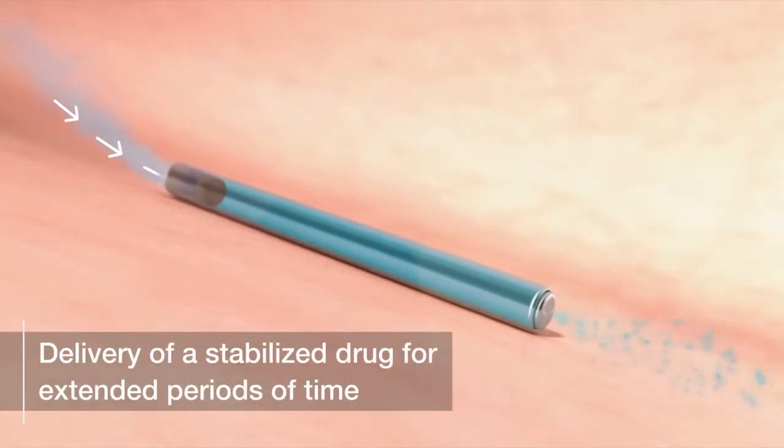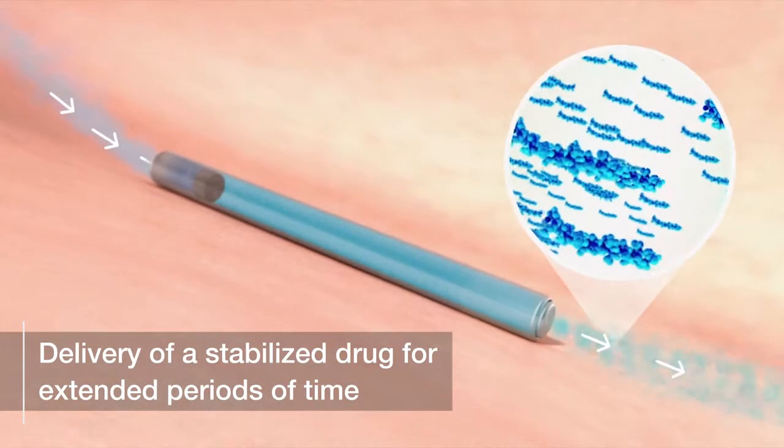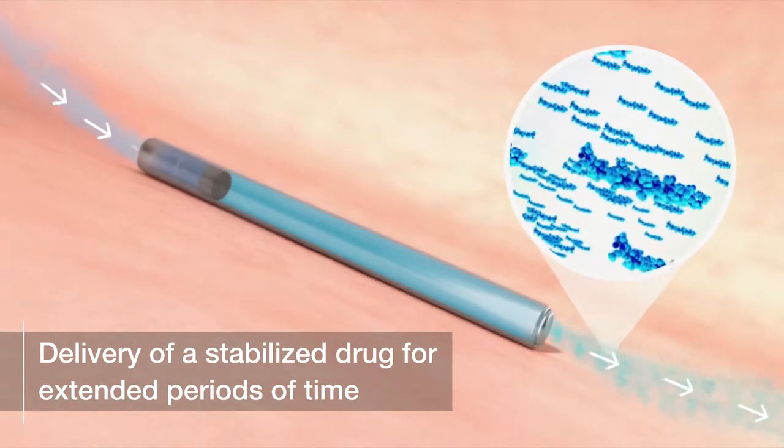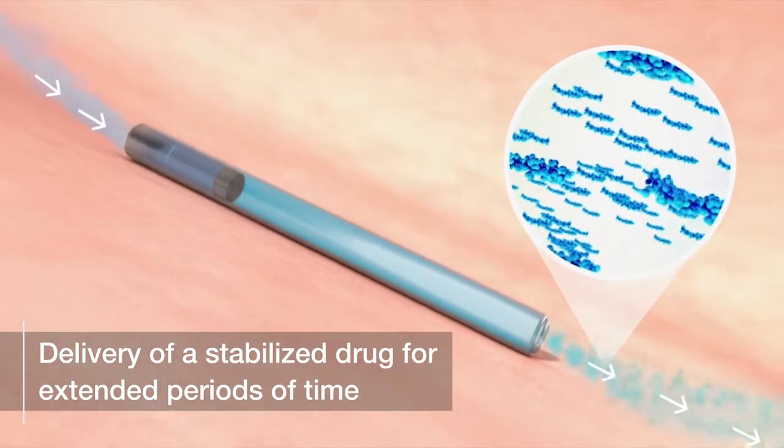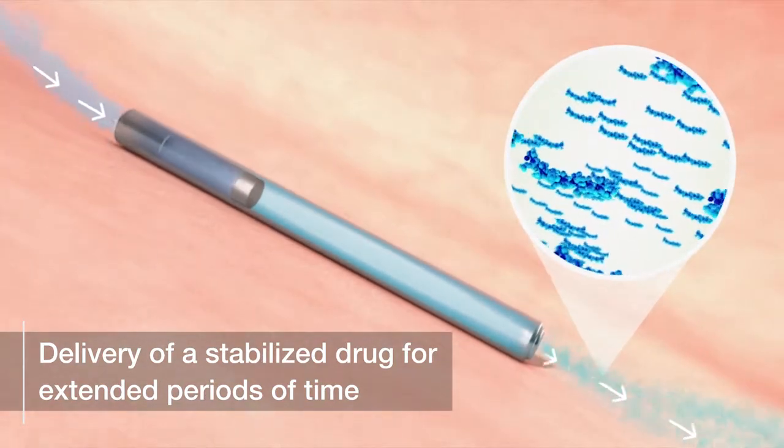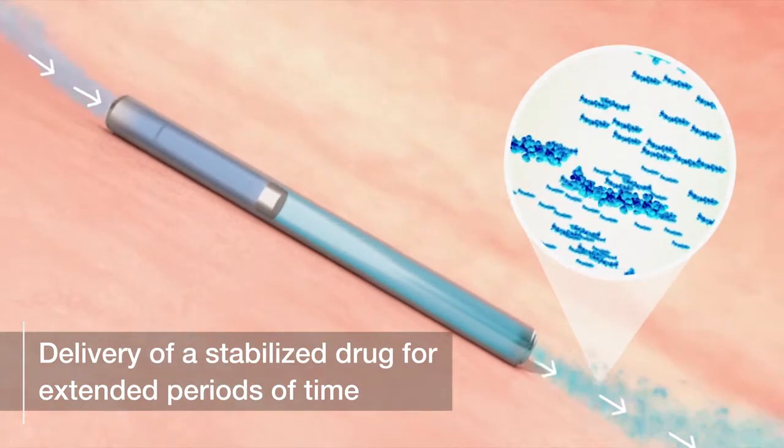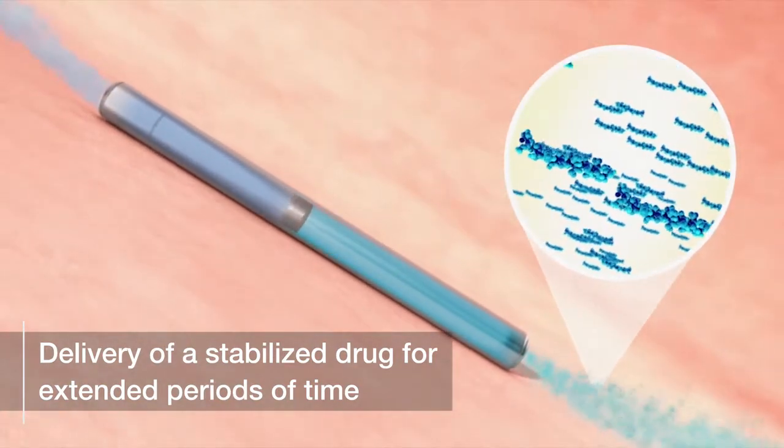The mini-pump works through the principle of osmosis. Water from the extracellular space enters the device through a semi-permeable membrane directly into a salt osmotic engine that expands to drive a piston at a slow and consistent rate of travel.